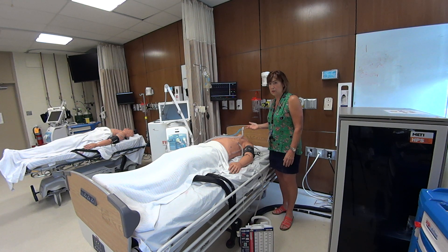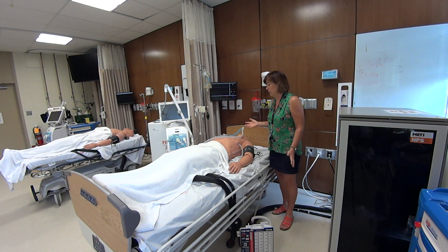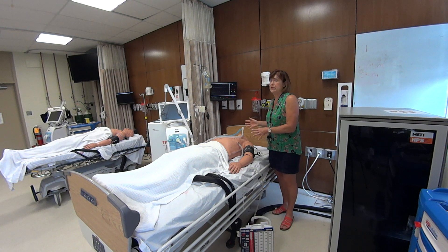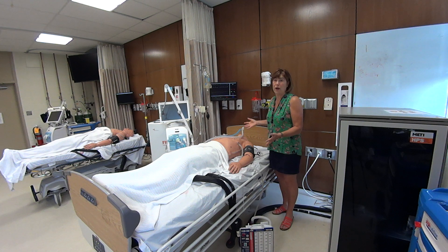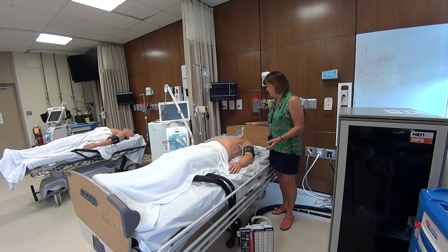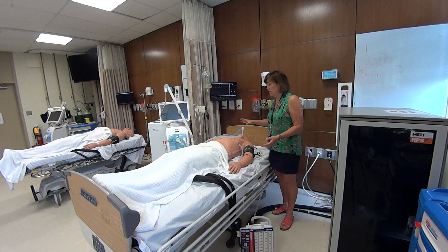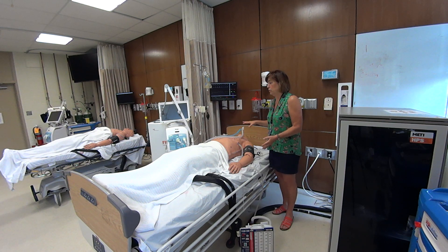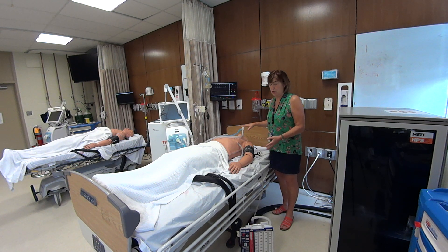We've talked about this in your conditions class and in several other ones. It's important that this stays in place because many patients may not be aware enough to support their own breathing. This is what you will see when a patient is intubated, and a ventilator will usually be attached.